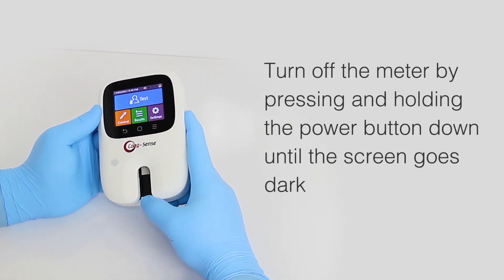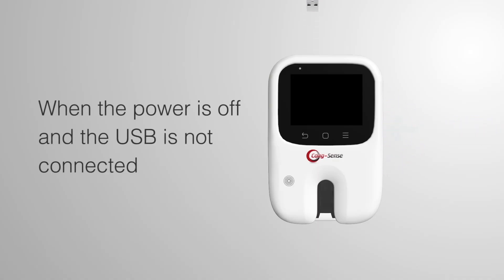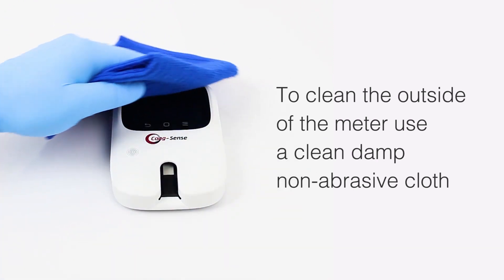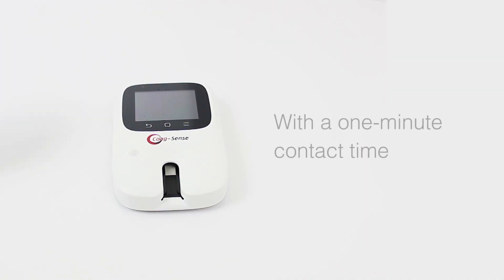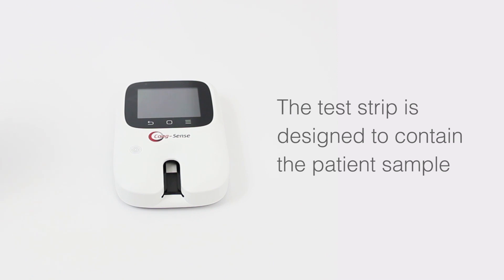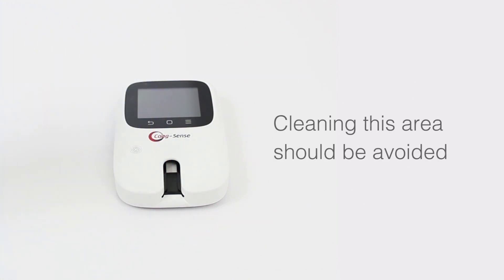Turn off the meter by pressing and holding the power button until the screen goes dark. No maintenance is required other than routine cleaning and/or disinfecting. When the power is off and the USB cable is not connected, the meter housing can be cleaned and disinfected. To clean the outside of the meter, use a clean, damp, non-abrasive cloth. The meter can be disinfected using germicidal wipes with 0.55% sodium hypochlorite or 10% bleach solution with a one-minute contact time, then allowed to air dry. Do not clean or disinfect inside the meter where the test strip is inserted.